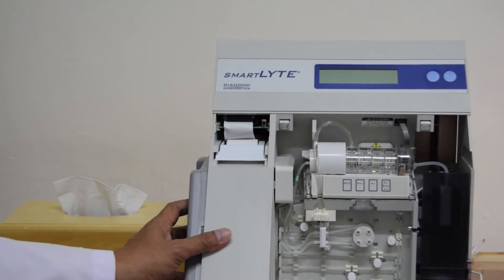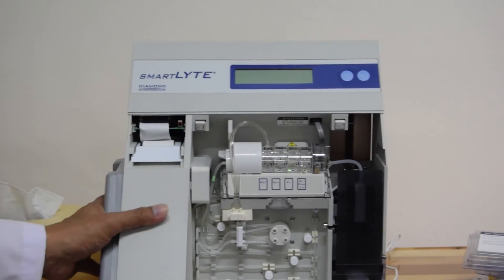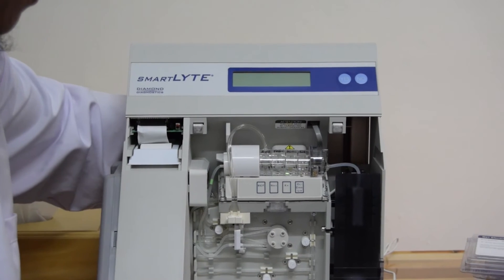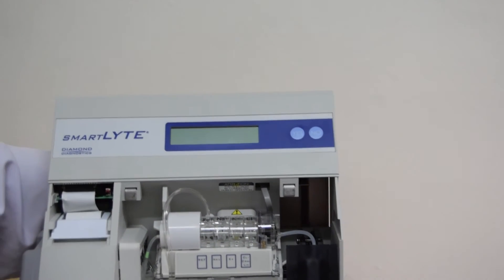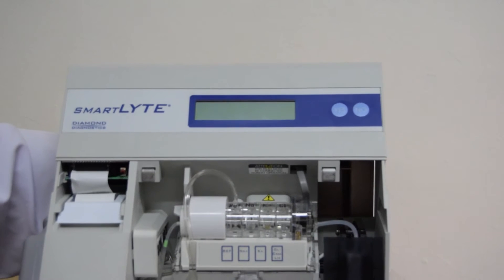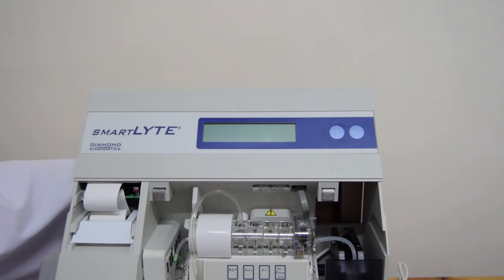Sekarang kita coba menyalakan alat ini untuk melihat kondisi alat sudah oke atau belum.